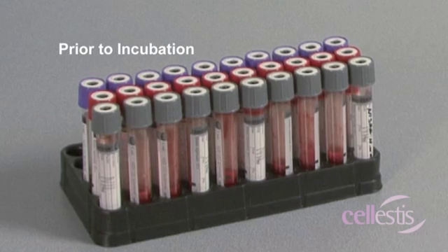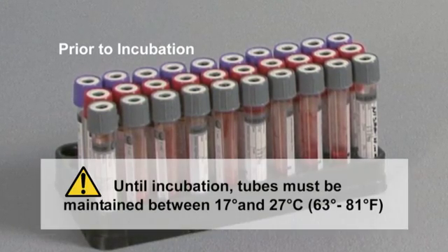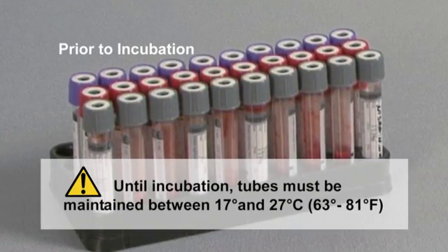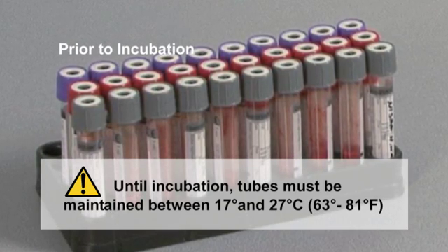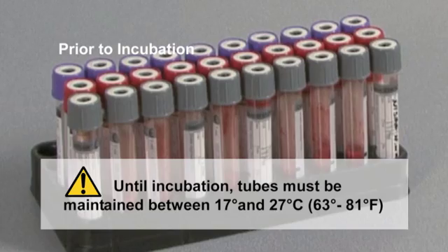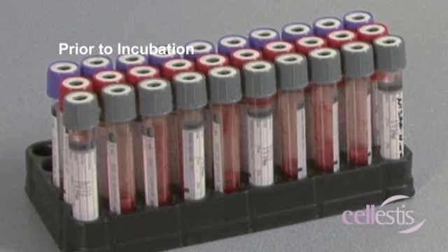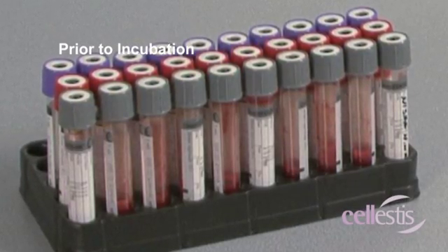From the time of blood collection to incubation, it is important to maintain tubes between 17 and 27 degrees Celsius, or 63 and 81 degrees Fahrenheit. Temperatures outside this range may cause erroneous results.